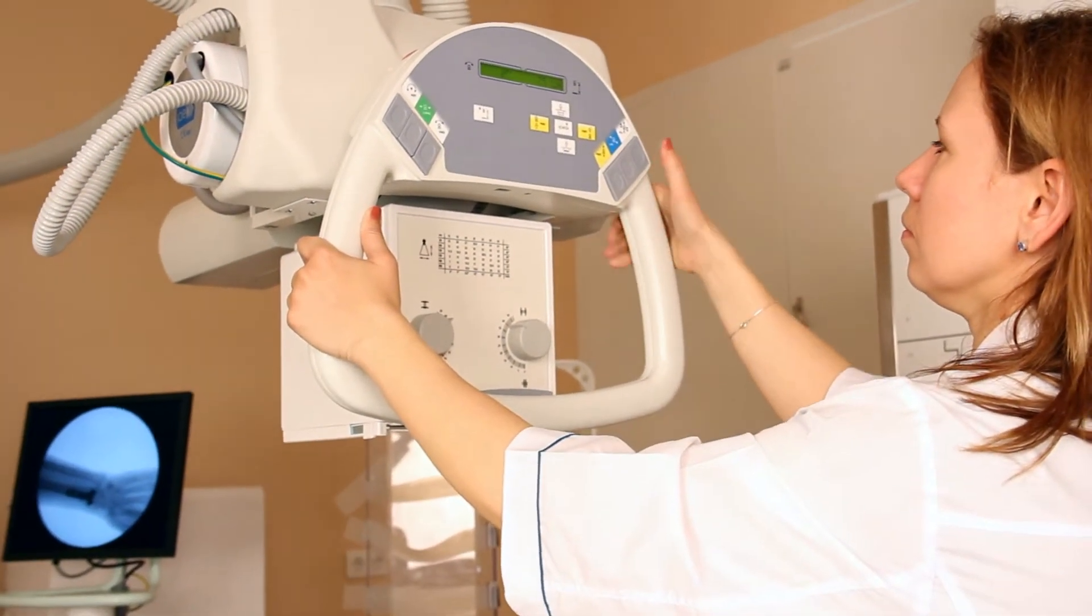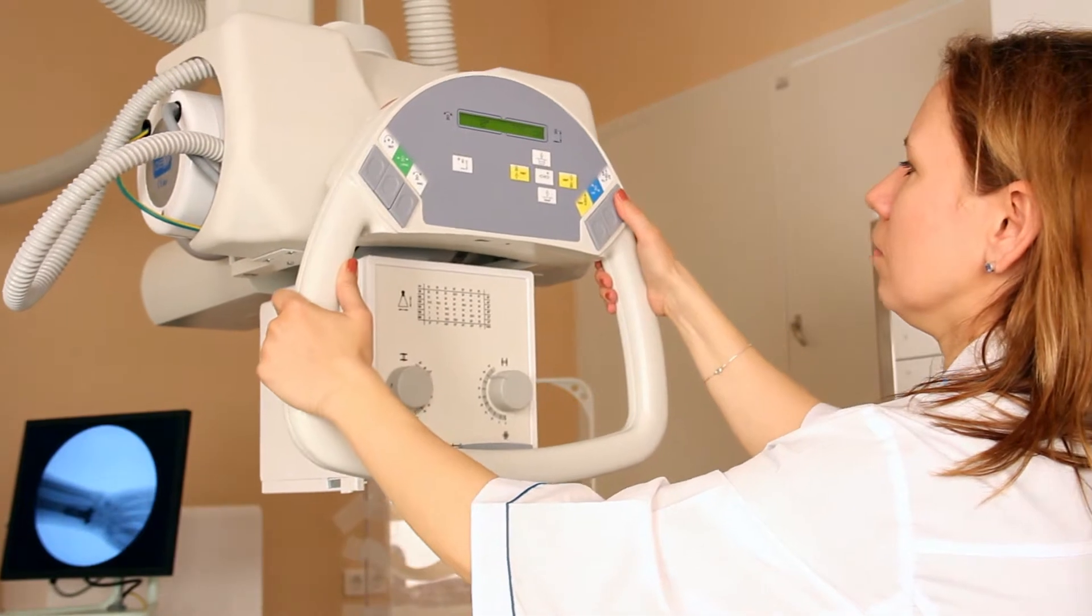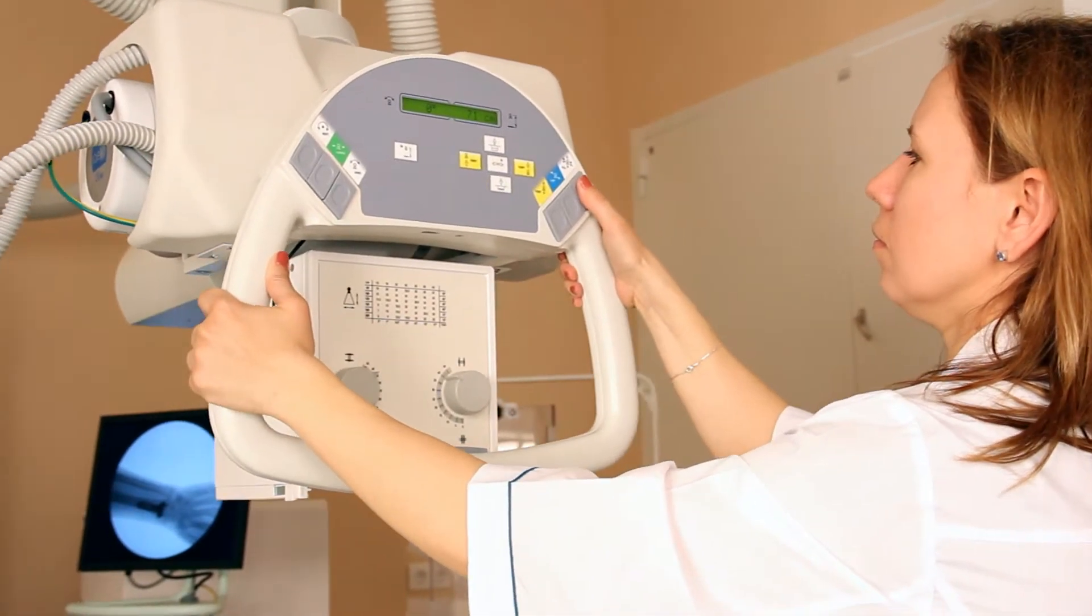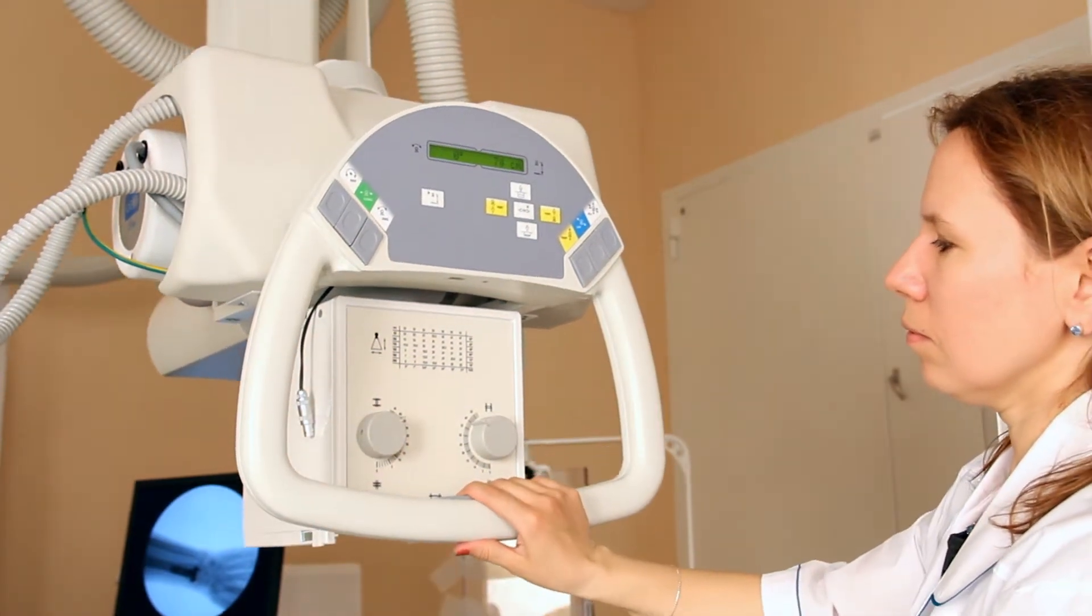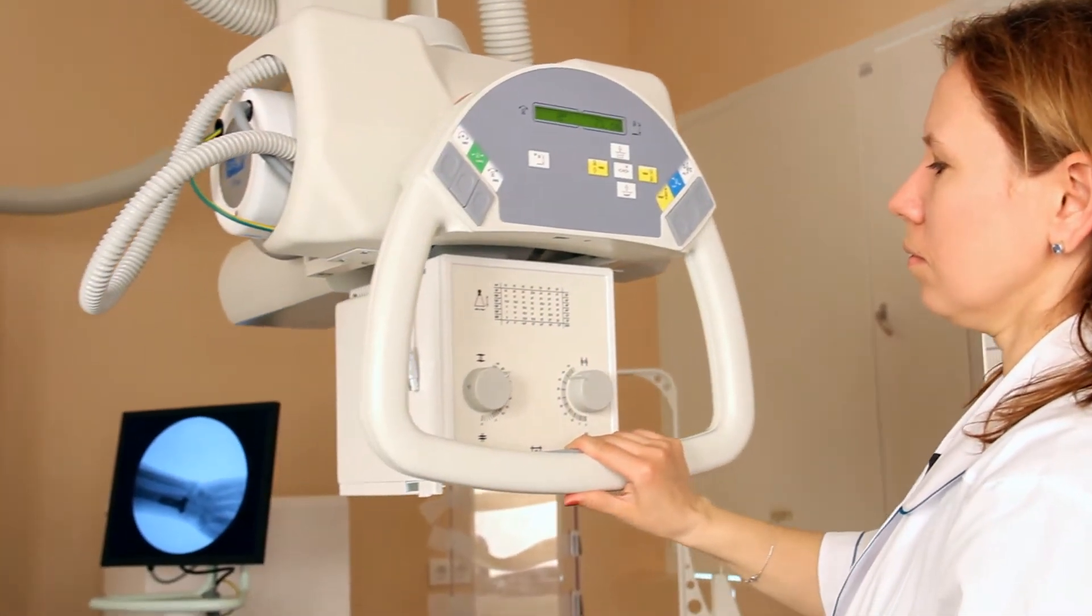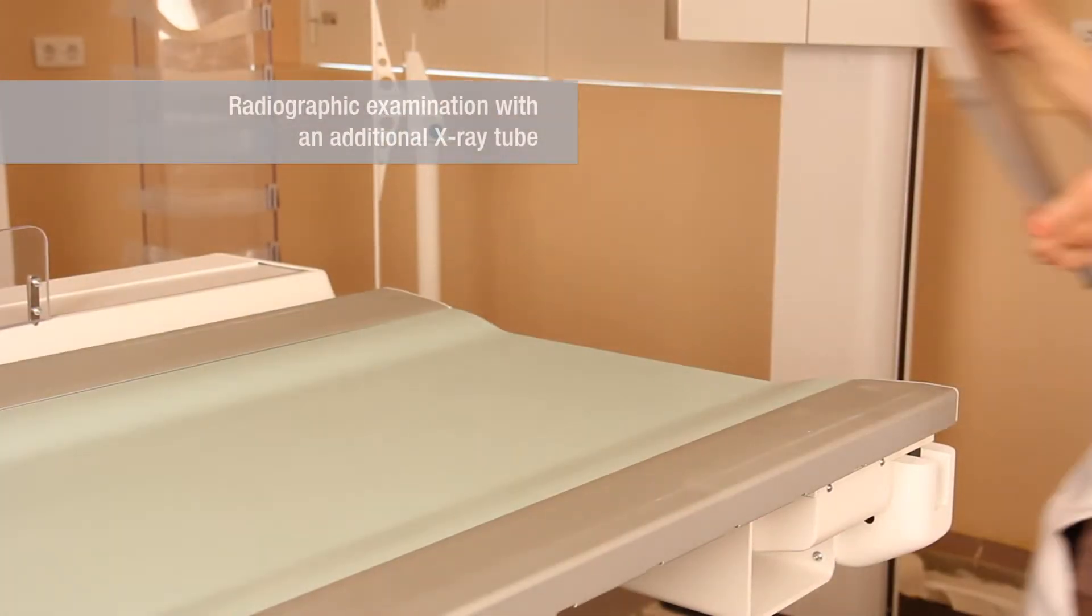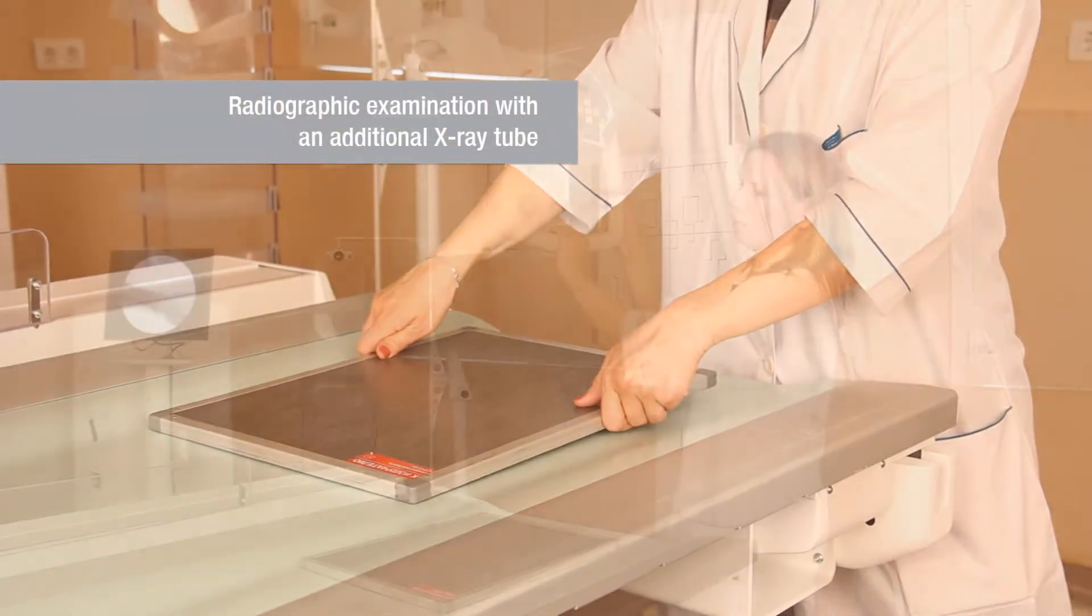By pressing just this one button, the tube may smoothly be moved in any direction. Carrying out routine examinations such as radiography becomes fast and easy with an additional X-ray tube.